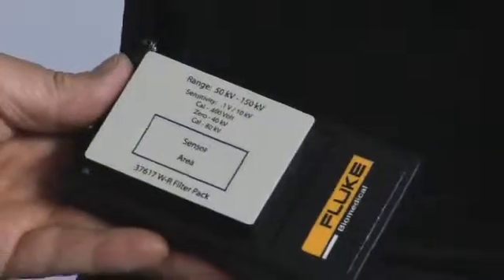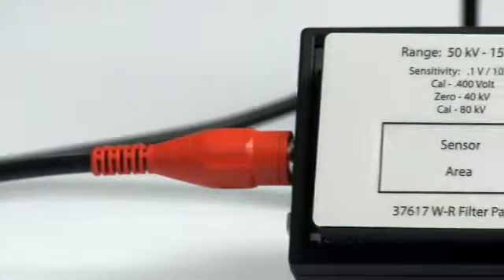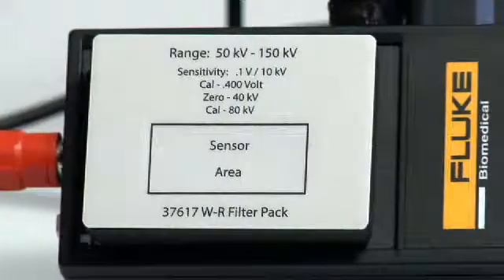KV is one of the most common measurements made. Thus, you are always ready without the need for a heavy divider tank or dosimeter kit along on every assignment. You can also transport both pieces in the handy carrying case if preferred.